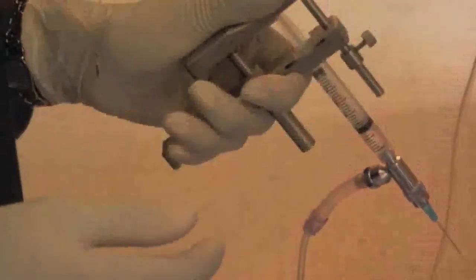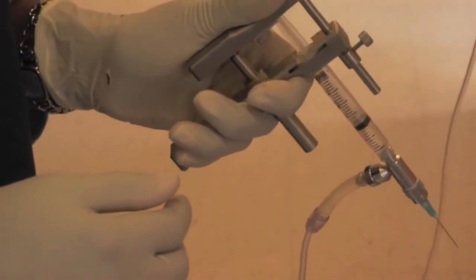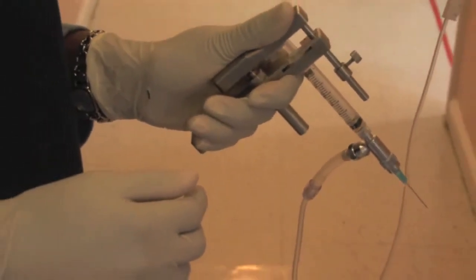The dosage control ring may be adjusted to deliver the desired volume with each compression of the handle.